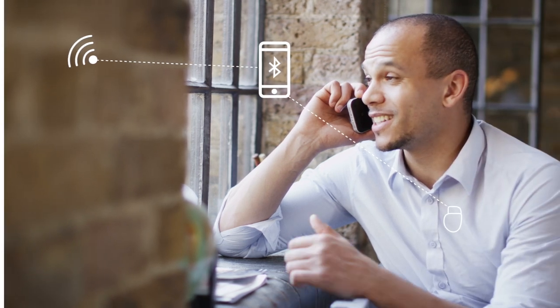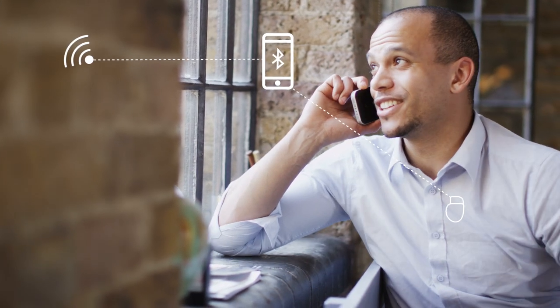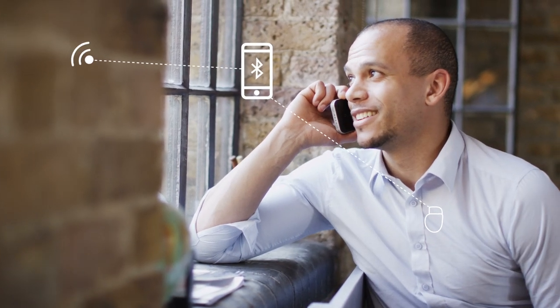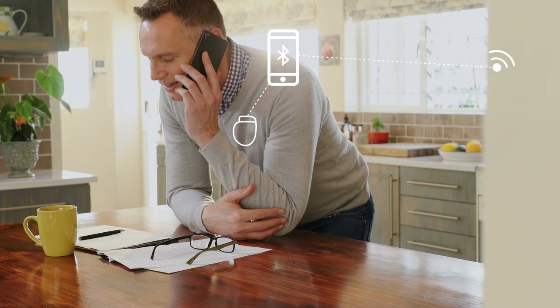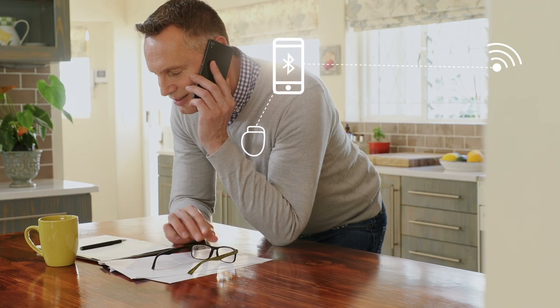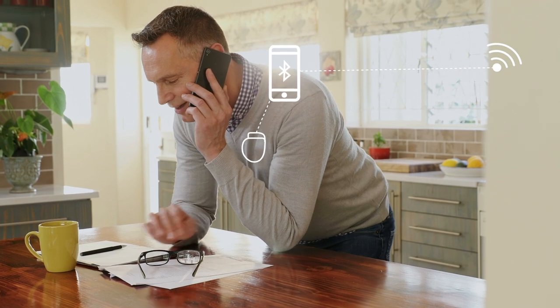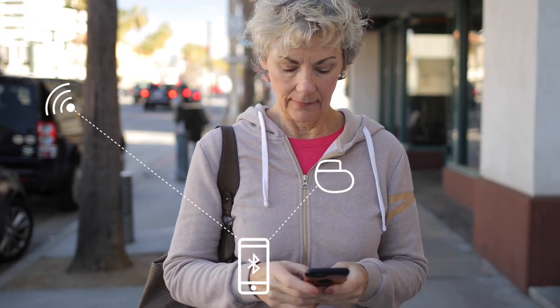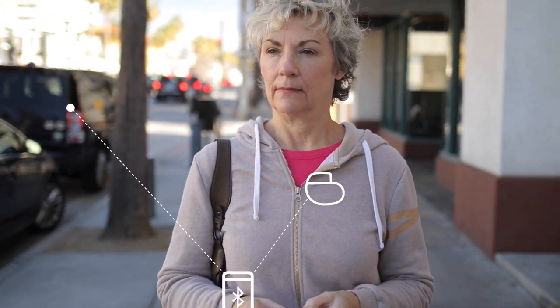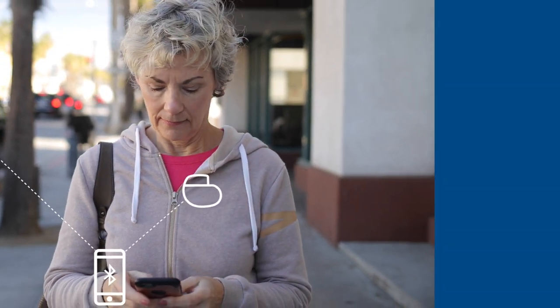The MyCareLink Heart mobile app is designed to give you greater freedom, convenience and peace of mind. Continue with your daily life knowing that your heart device is connected to your clinic wherever you go.